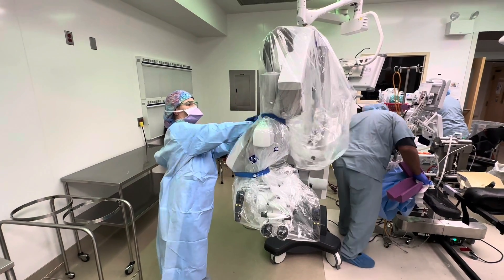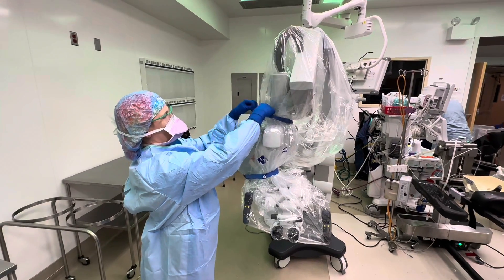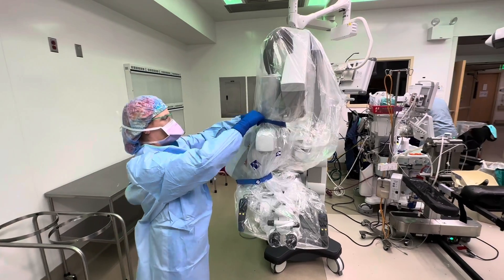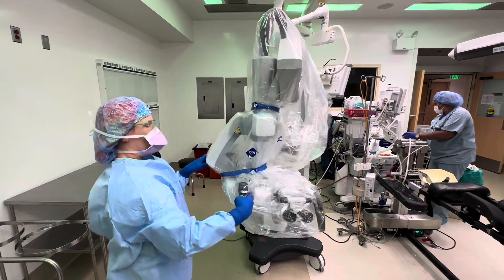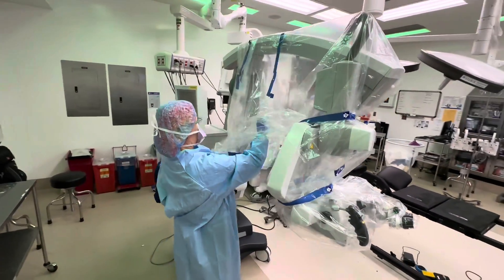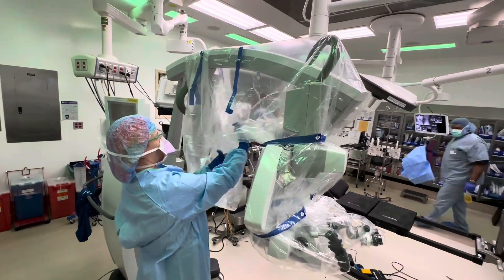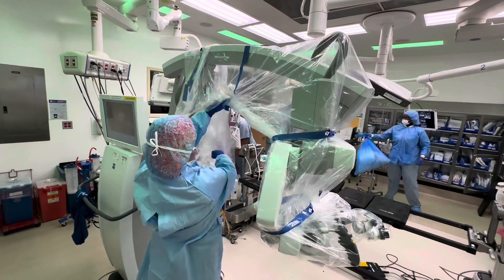Put it above that elbow. Check it after you tie it. On the middle one, you tie it really tight because it's the surgeon's head and it's annoying if it's loose.